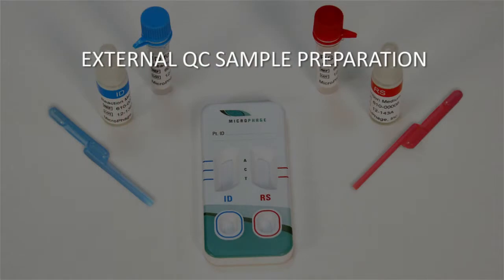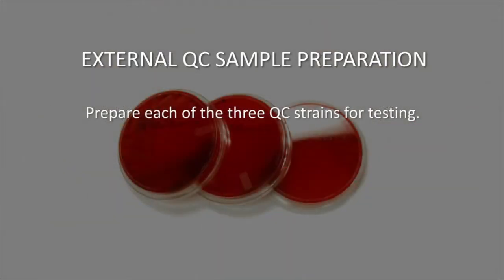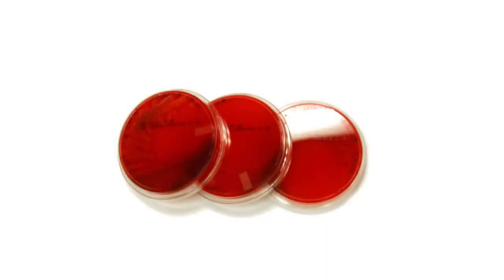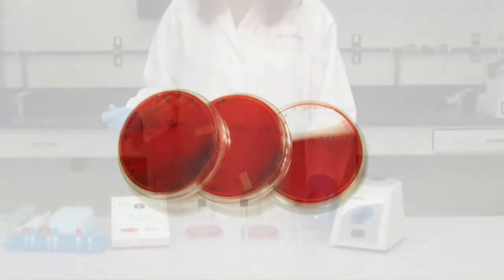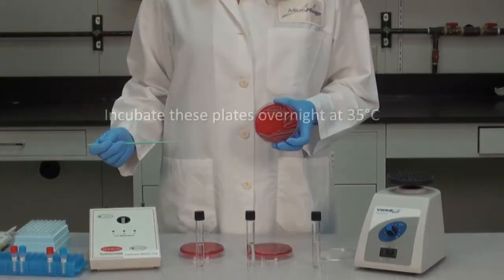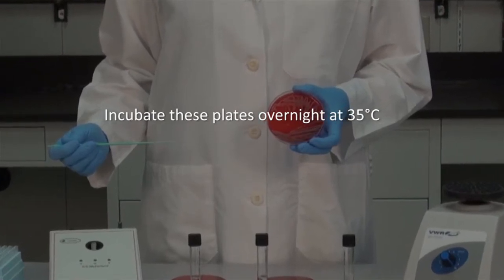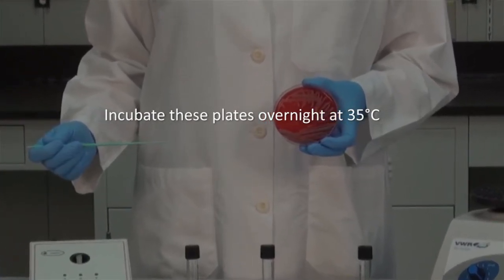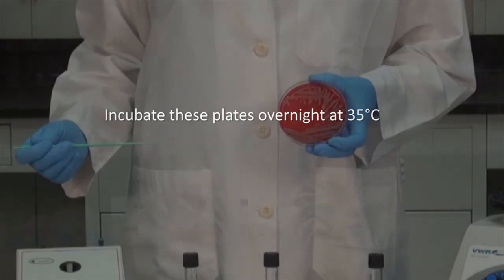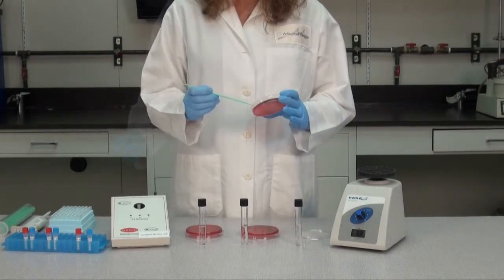External QC sample preparation. The first step in performing external quality control testing is to prepare each of the 3 QC strains for testing. Begin by culturing and isolating individual colonies of each control strain on trypticase soy agar culture plates with 5% sheep blood. Incubate these plates overnight at 35 degrees Celsius. Use a fresh culture that has incubated for 24 hours or less for testing. Next, prepare a 0.5 McFarland suspension for each control strain.